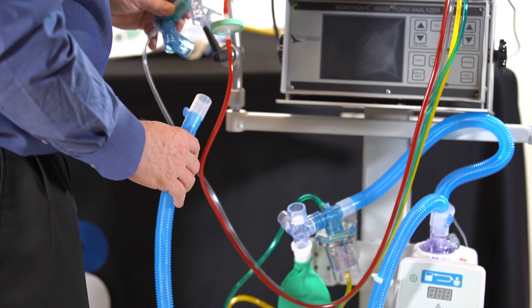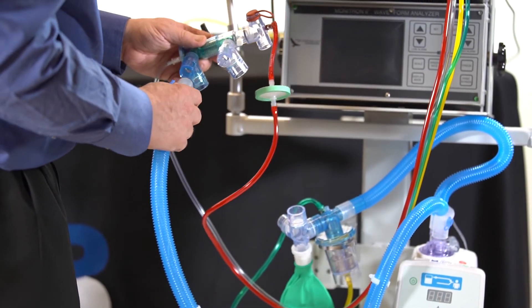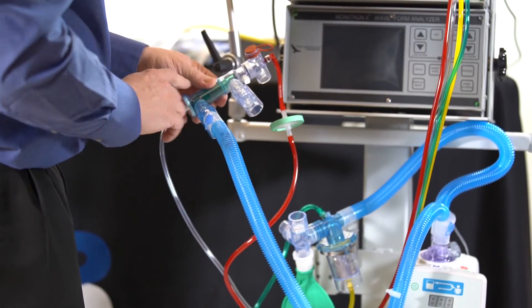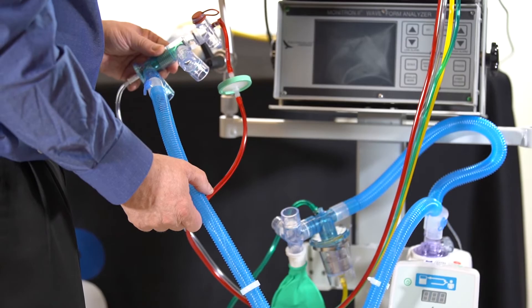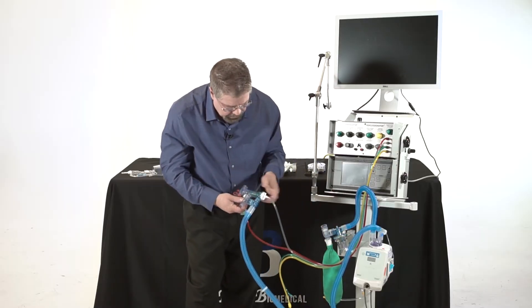Now the manufacturer did a very nice job of making the plastic different colors, so it helps me when I set this ventilator circuit up. I simply take blue to blue.